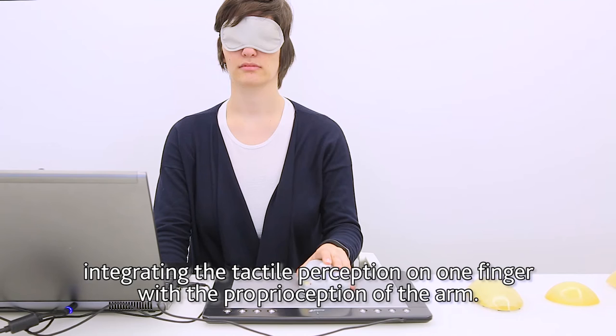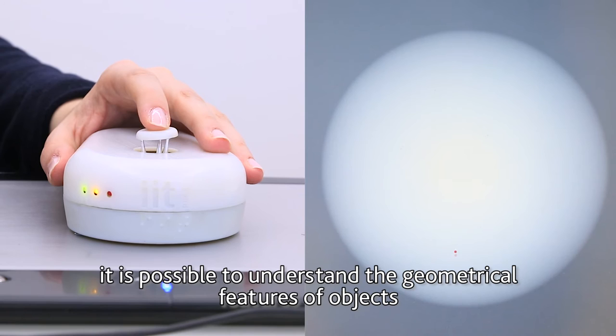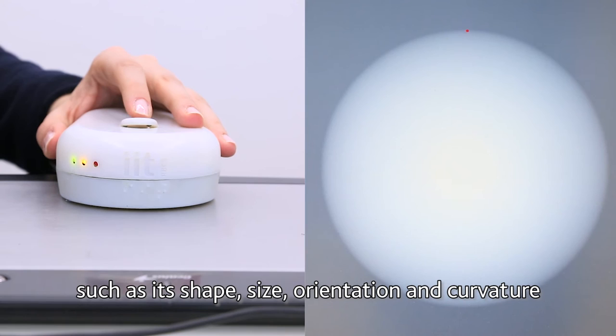Moreover, interacting with the TAMO3, it is possible to understand the geometrical features of objects, such as its shape, size, orientation and curvature.